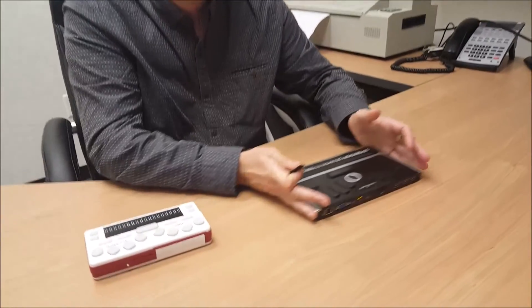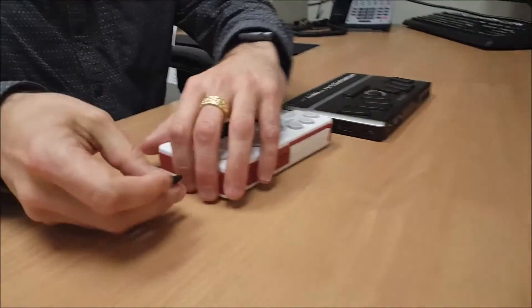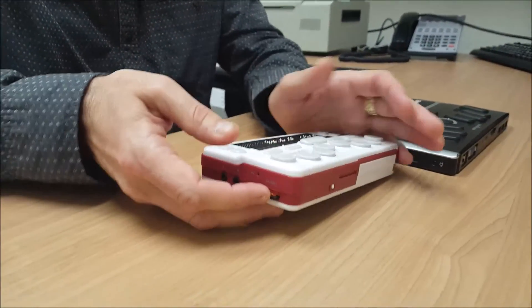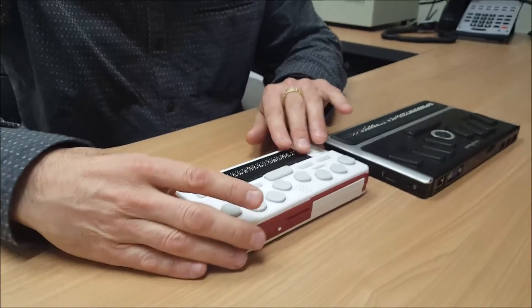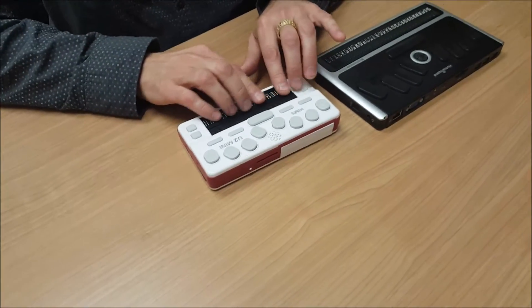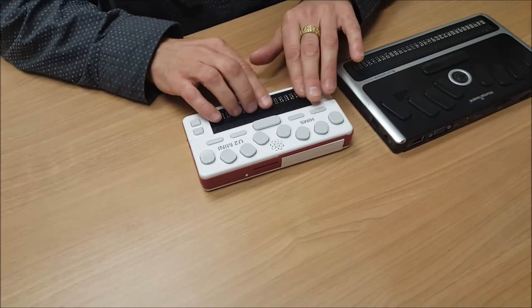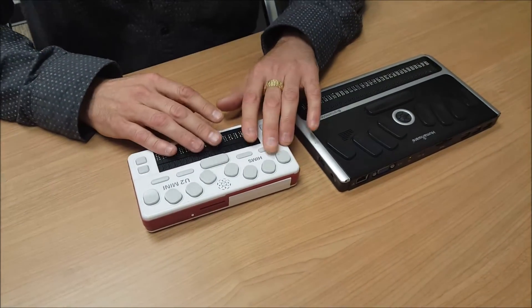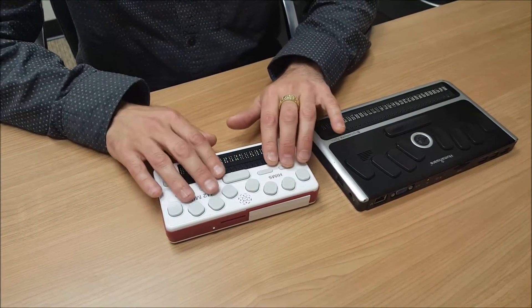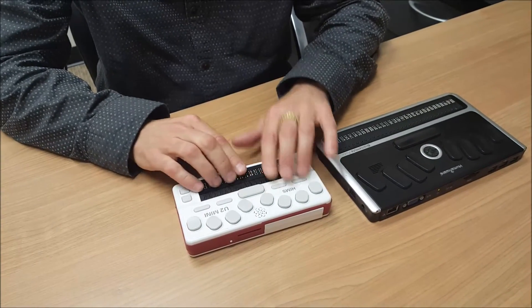We're going to transfer that SD card to the BrailleSense, a BrailleSense mini in this case. I heard my little chime, and on the Braille display I got the message 'storage card inserted.' I'm going to open the file manager by pressing function key one and enter.